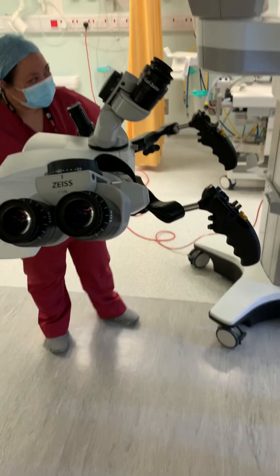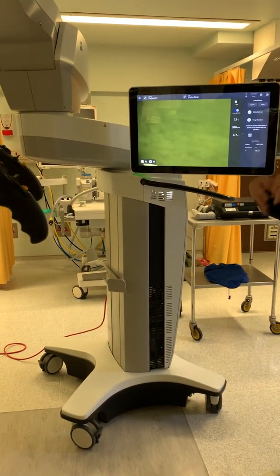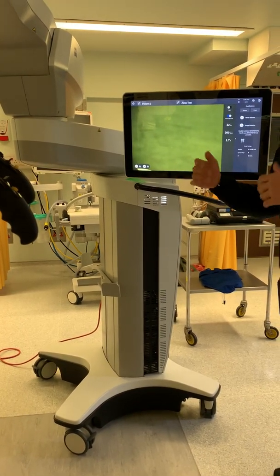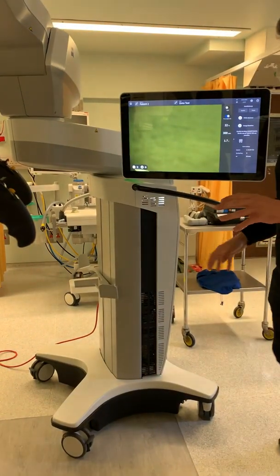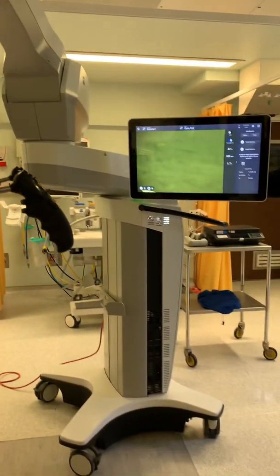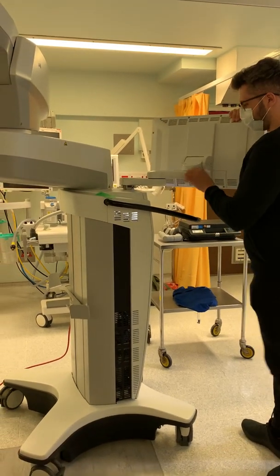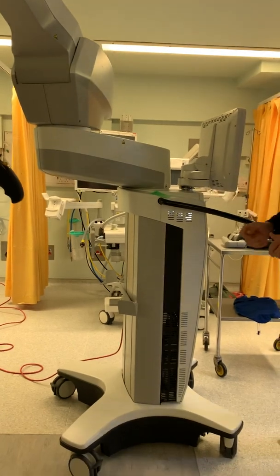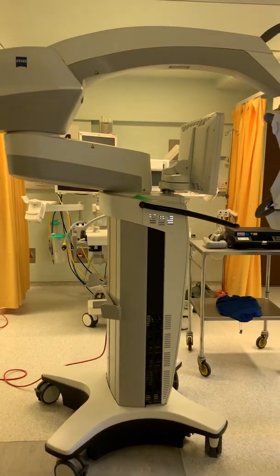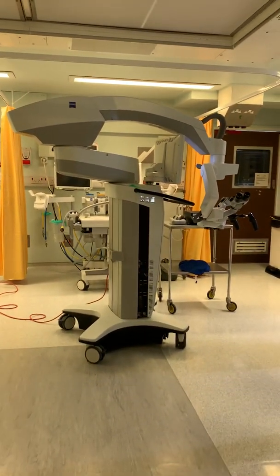Park it before you turn it off, because the motors will lock and you'll get warnings on startup saying 'please call an engineer.' People have moved it through a doorway after powering off — that's not the way to do it, similar to towing an automatic car. For the park position: pull this arm in and it will fold over itself, going nice and flat. Then move the microscope head over the arm — be careful not to hit the screen — and that's as compact as it will go. Then you can turn it off.